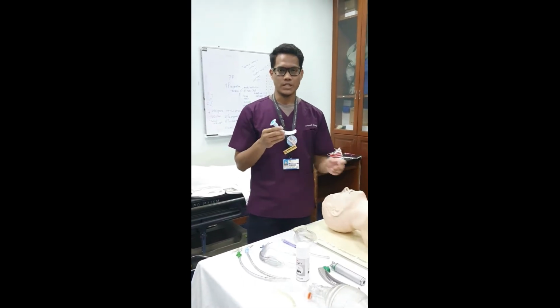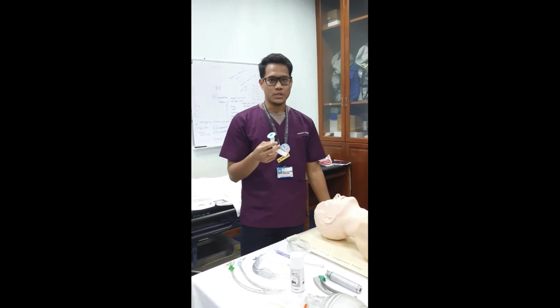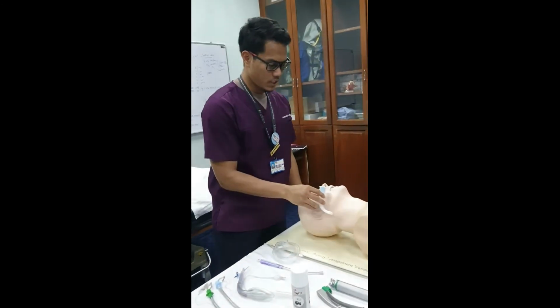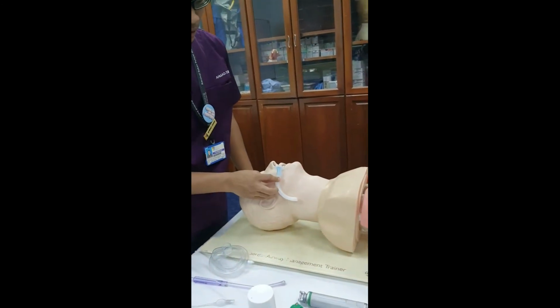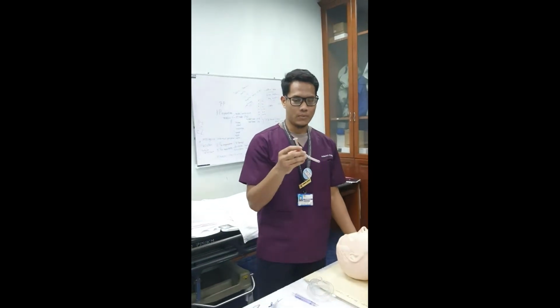Okay, next we have the airway adjuncts. The oropharyngeal airway is used to prevent airway obstruction in an unconscious patient. How do we choose this airway? We choose the size by measuring from the angle of the mouth to the angle of the mandible. And then we also have the nasopharyngeal airway.